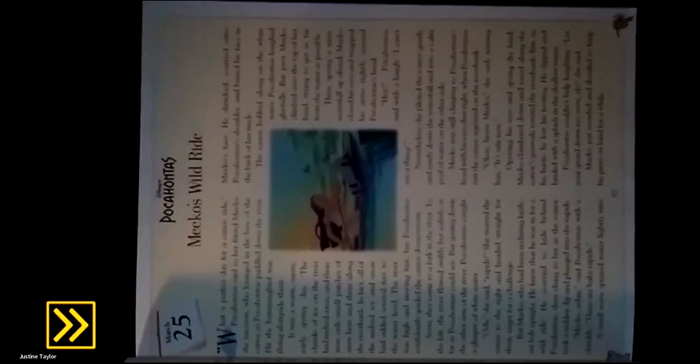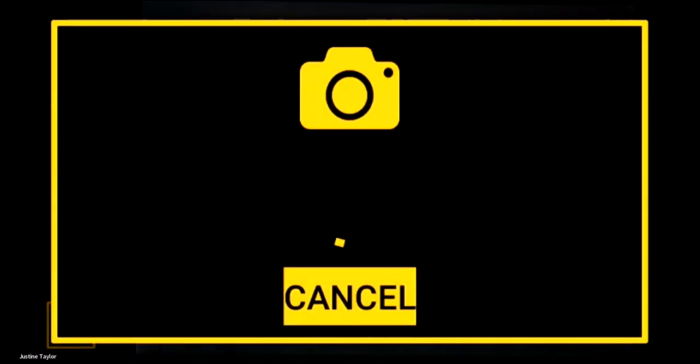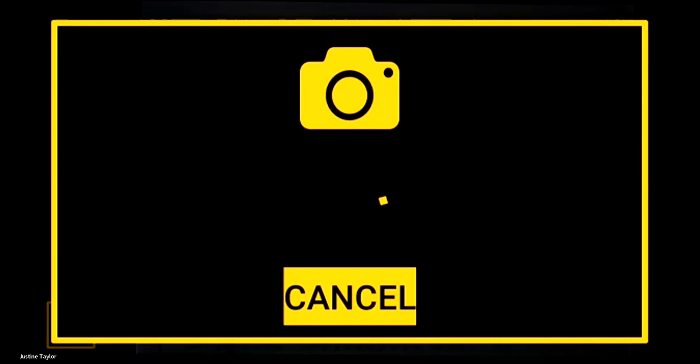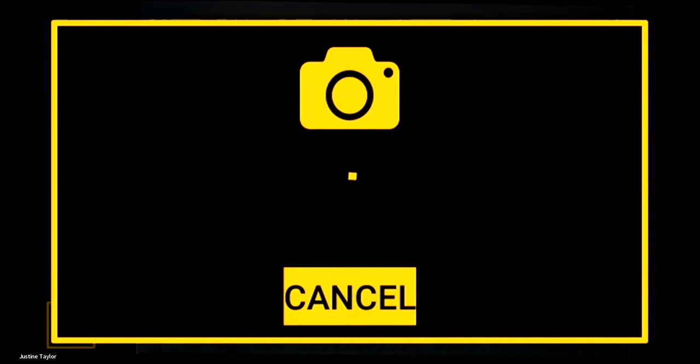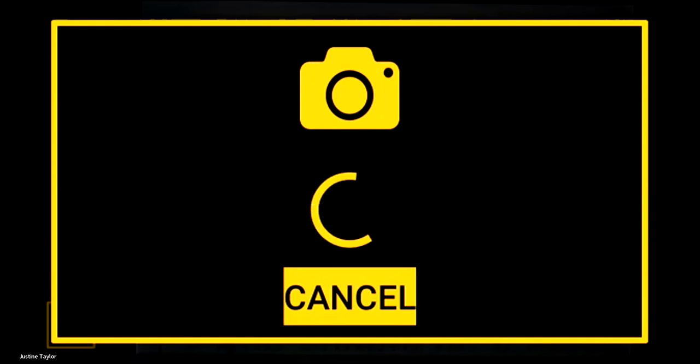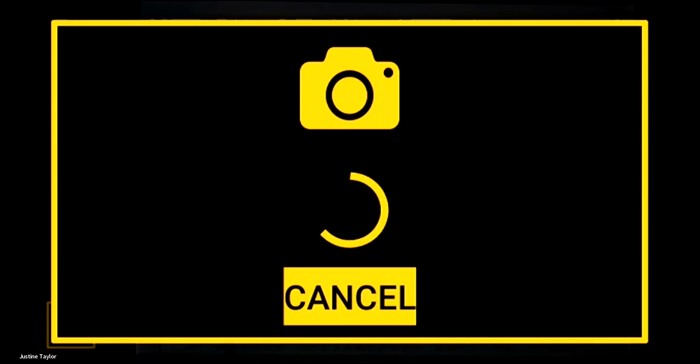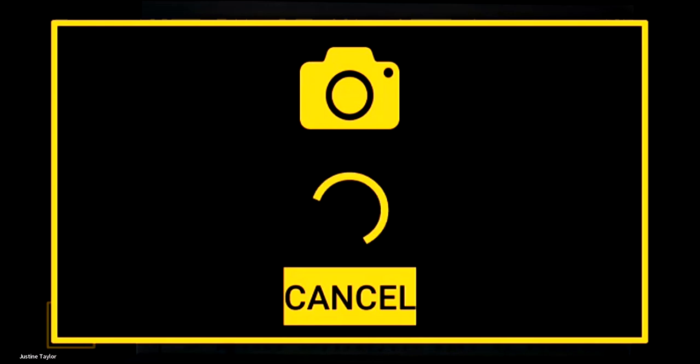While reconnecting, I'll mention that once you capture an image you can save it and go back to it, which Justine will demonstrate. A question that came in: how does Juno deal with any shakiness or unsteadiness when taking a photo? There is a slight delay — when you hit the capture button, you want to wait until you hear the shutter sound. A lot of people press the button and start to move the Juno immediately, but you want to wait for that capture sound before moving.